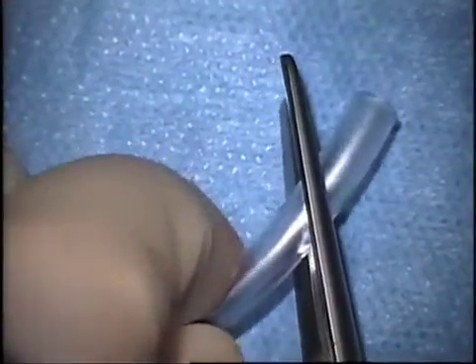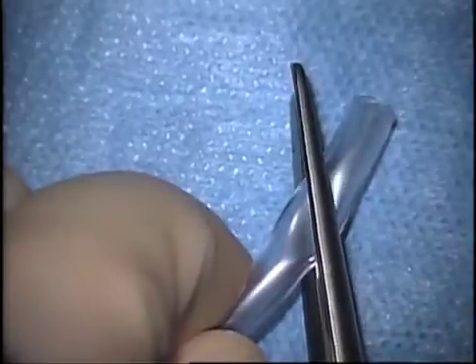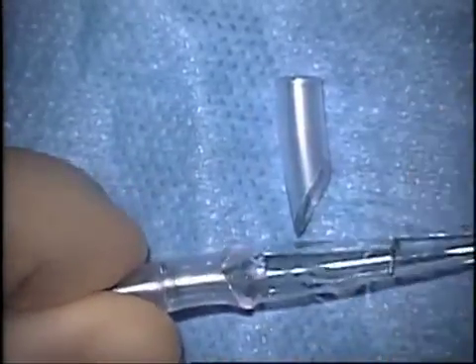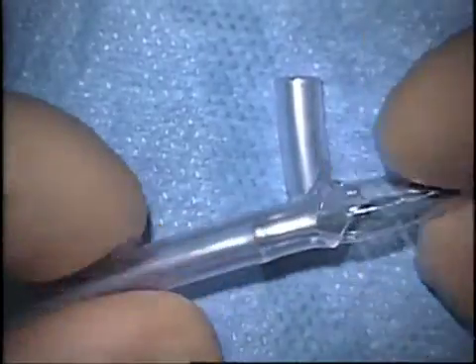First I trim the nasogastric suction tube at an angle to put a little bevel on it so that the Jones tube will seat in it well. Then I put the Jones tube down in there. It fits real snugly, especially with that bevel, and that's all there is to it.